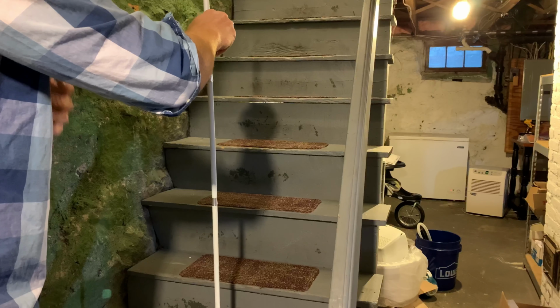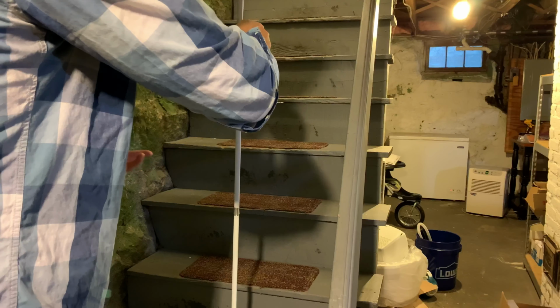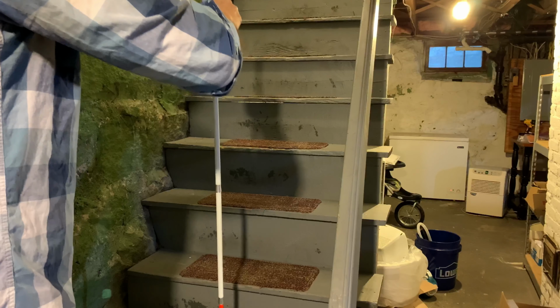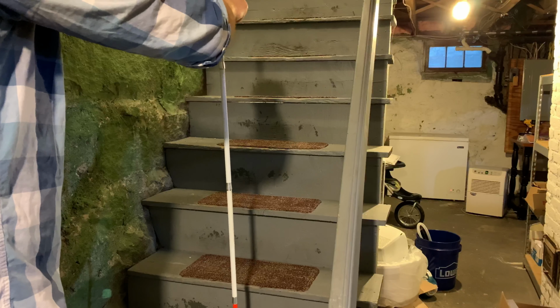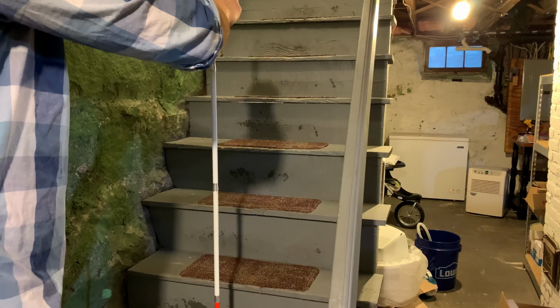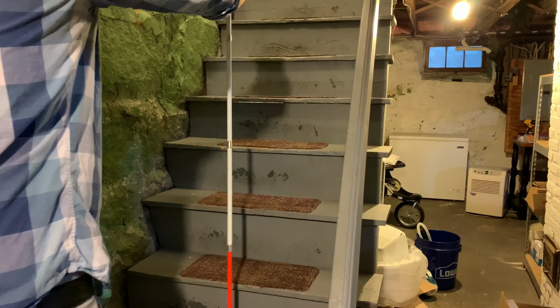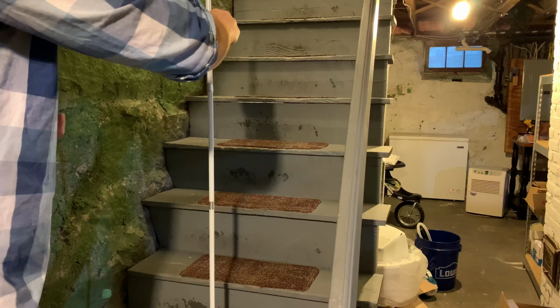Okay, so now we come to step 8, which is actually heading up the stairs. So when heading up the stairs, you want to walk one foot in front of the other. So you have left foot on one step, right foot on the next step. And you're going to be looking for the lip of each step while you're walking up. So right now my cane tip is again on that third stair, and when I start walking, I'm going to go up to the next lip of the fourth stair. And to do that, you can even use your thumb a little bit to kind of flick the cane forward to help find the next step. So that's how you go up the stairs.